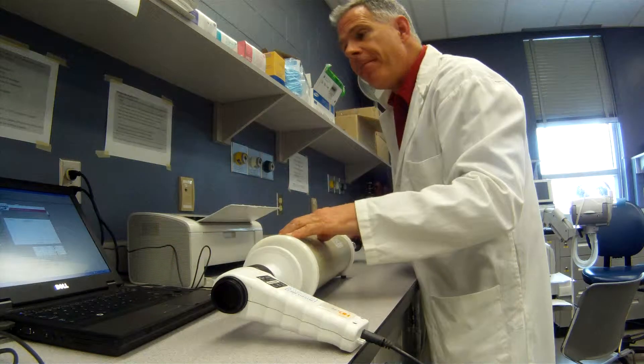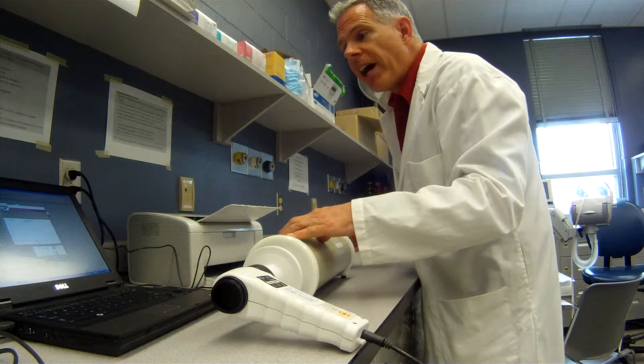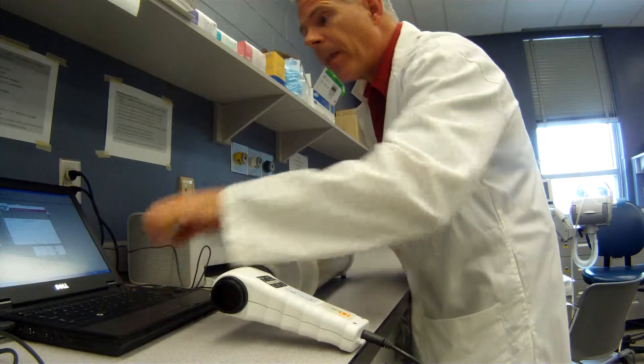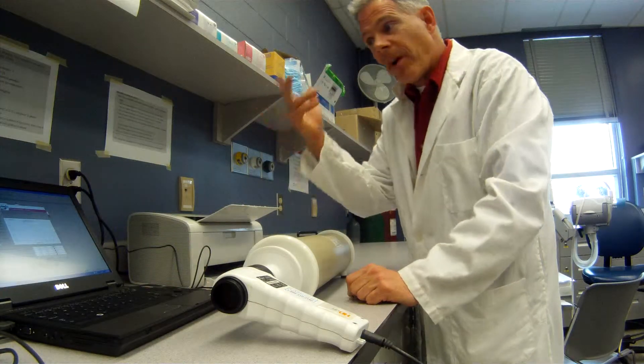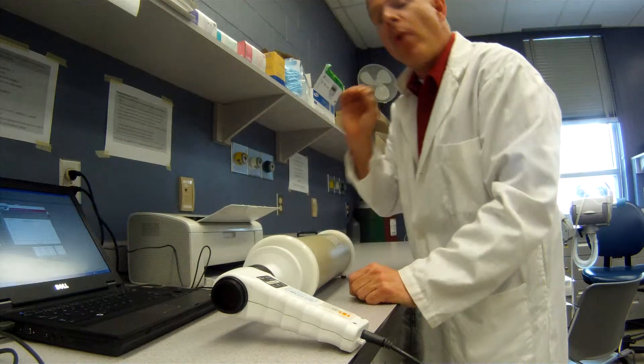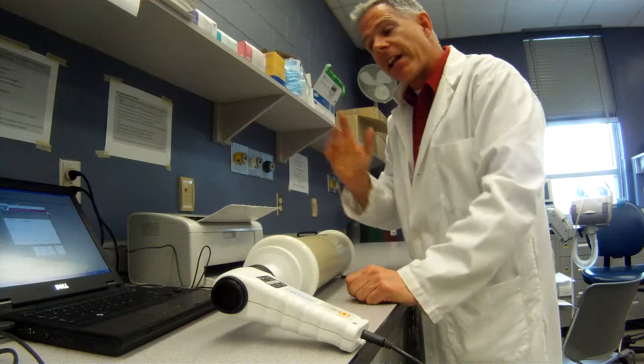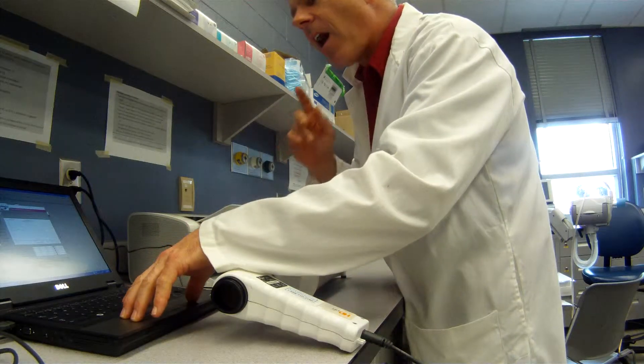So hit the space bar again. Now I'm going to reach that low flow line. Success. It measured that as 2.98. So it verifies that it's working, but we haven't done it at the higher flow rates yet. So I'm going to hit continue.